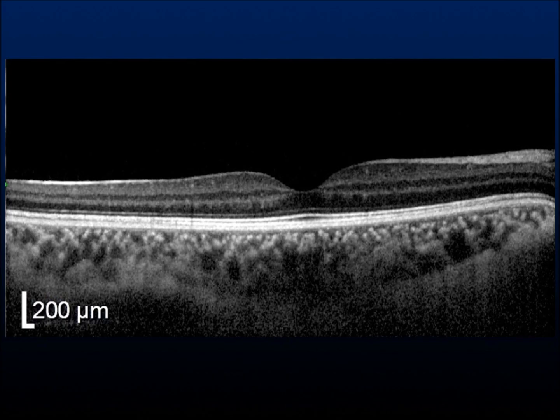This is the Retina Imaging Channel. In this video we shall be talking about the normal OCT features. This is how a normal OCT looks like.